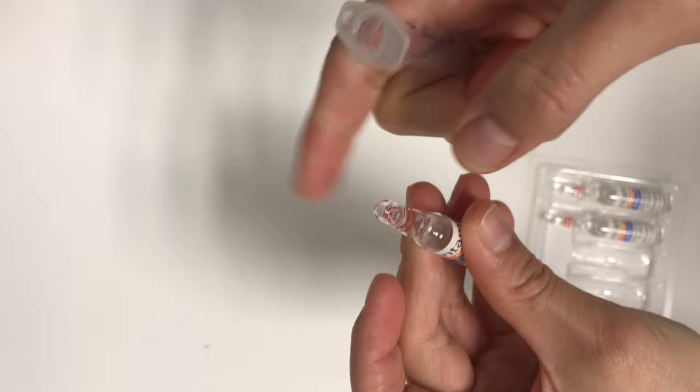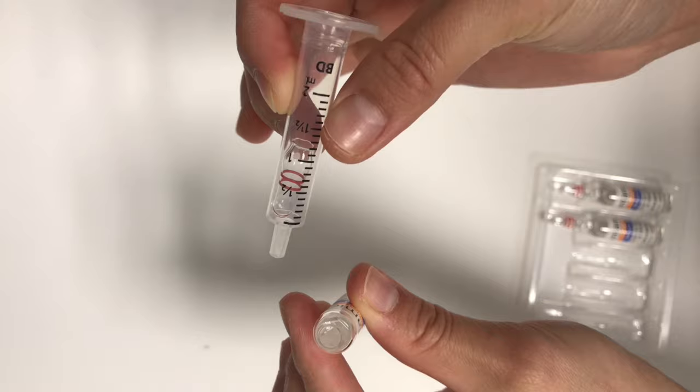And another way is if you're having difficulty, you can grab a syringe, put the head of the ampule there. This is for any ampule that is very difficult to break, and then you have to firmly bend it away from you. And then, tada, that's it!